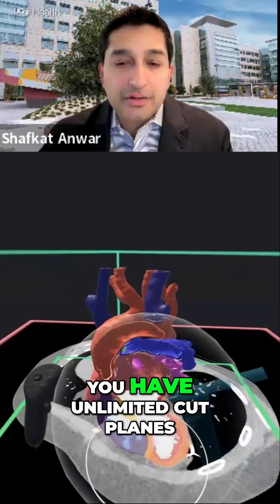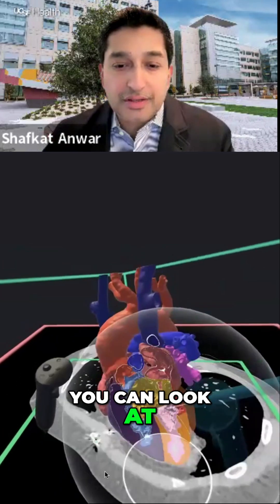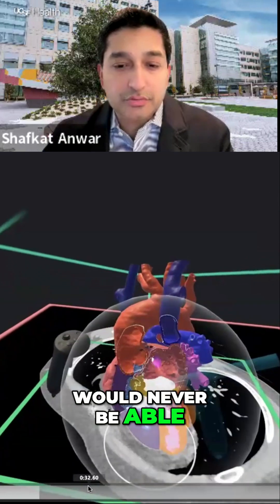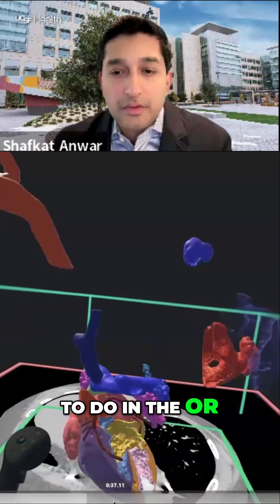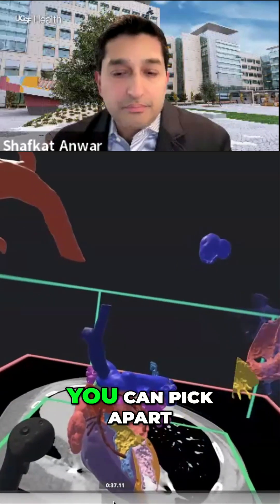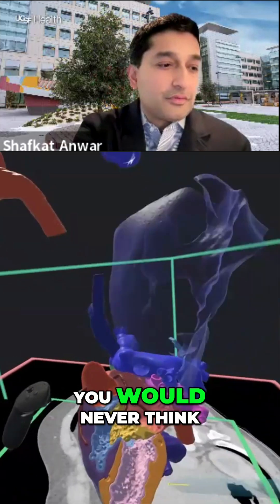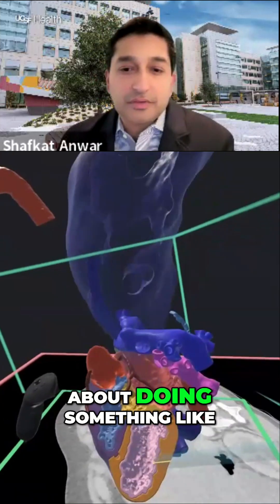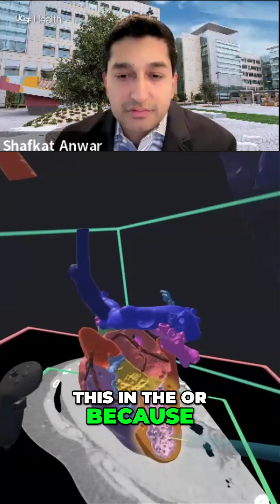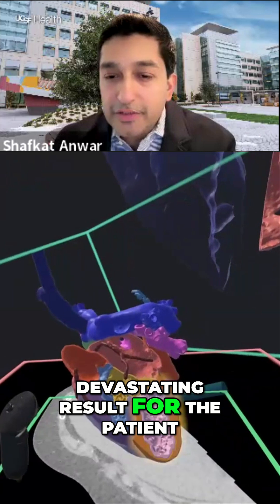You have unlimited cut planes. You can look at the anatomy in very unique ways that we would never be able to do in the OR. And I love this part — you can pick apart the whole model. You would never think about doing something like this in the OR because it would be a devastating result for the patient.